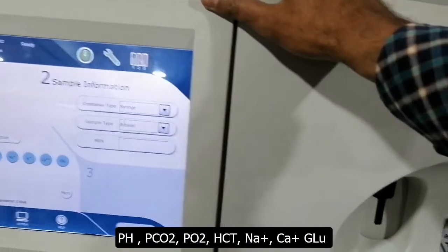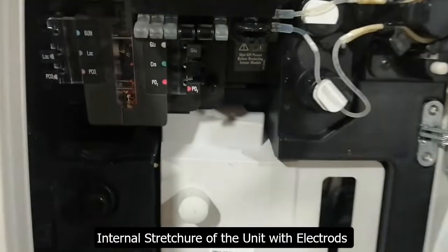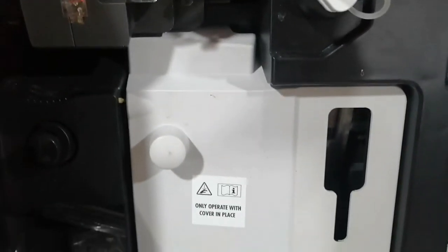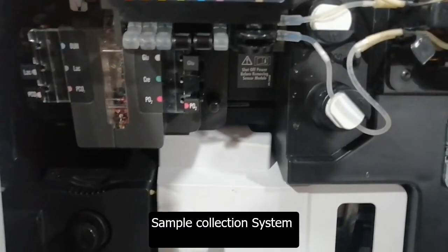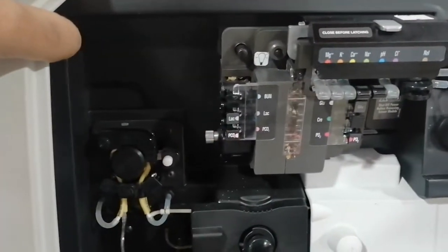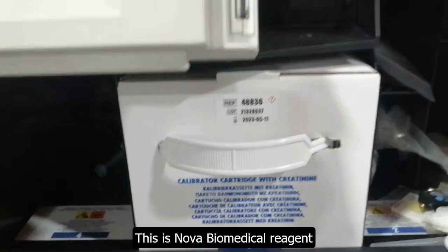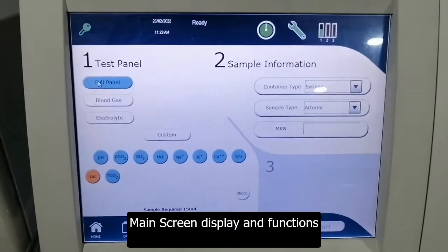This is the internal structure of this machine where all the electrodes are available — sodium, potassium, calcium, pH, and other parameters. Here is the syringe insert system and internal pumps — the main pumps which can execute the reagent. This is the region where you can put reagent inside and calibrate the machine accordingly.